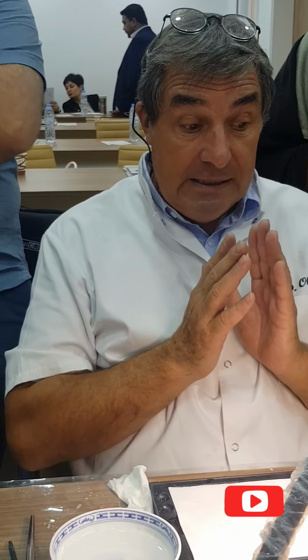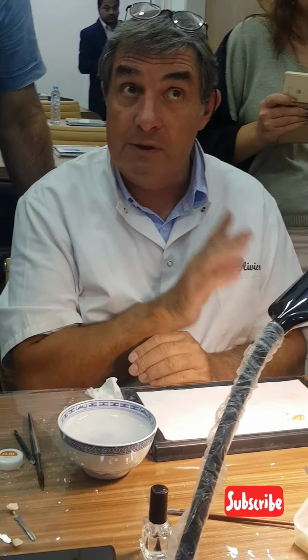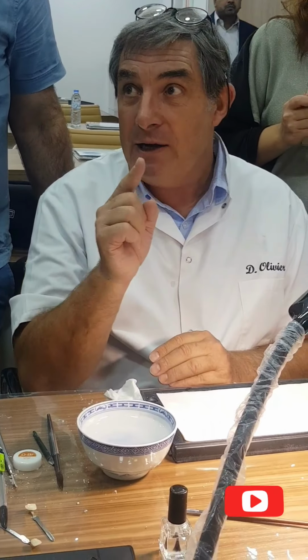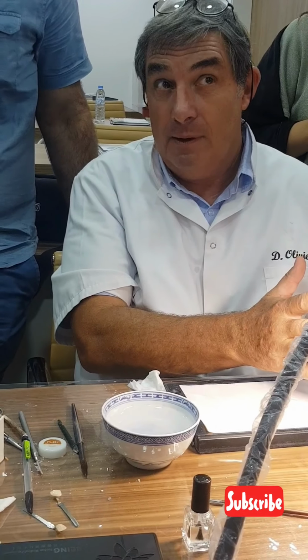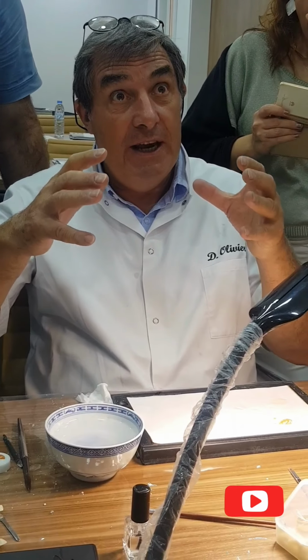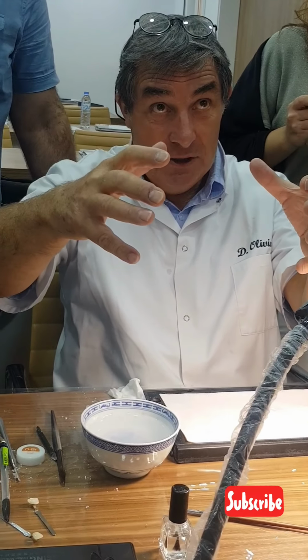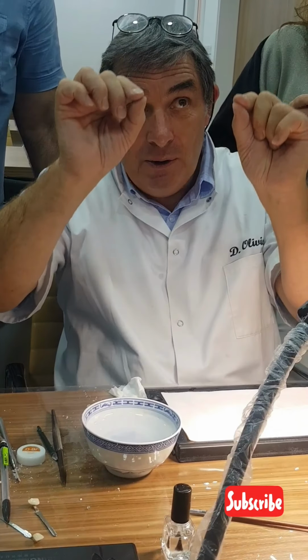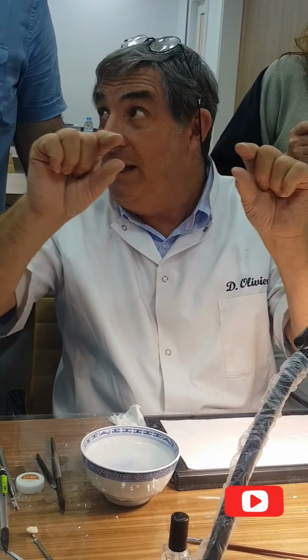It's interesting, but it's not all. The secret to obtain one crown in one firing, it's why. Now I'm going to overbuild with translucent, and I go back with my translucent to the final shape on the model. And I will overbuild 10% more with the enamel. During the firing, shrinkage, my small mamelon shrinkage, and they are very well placed.